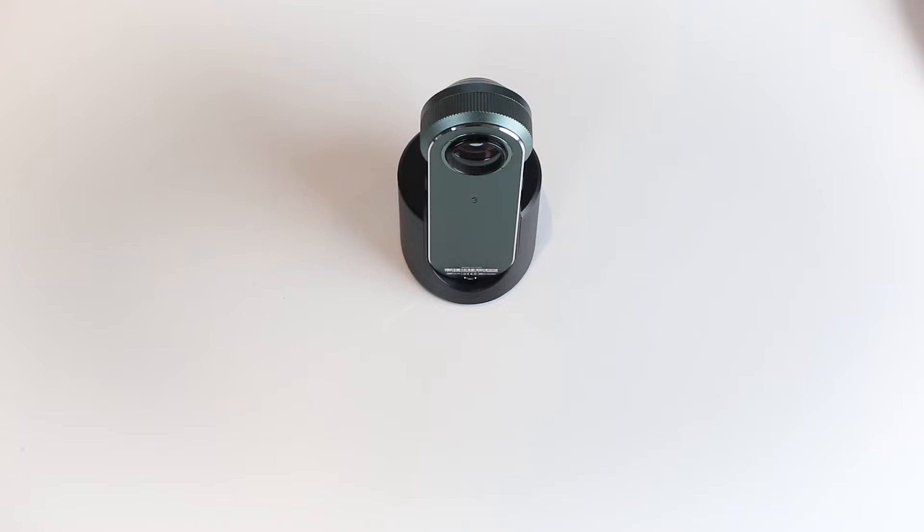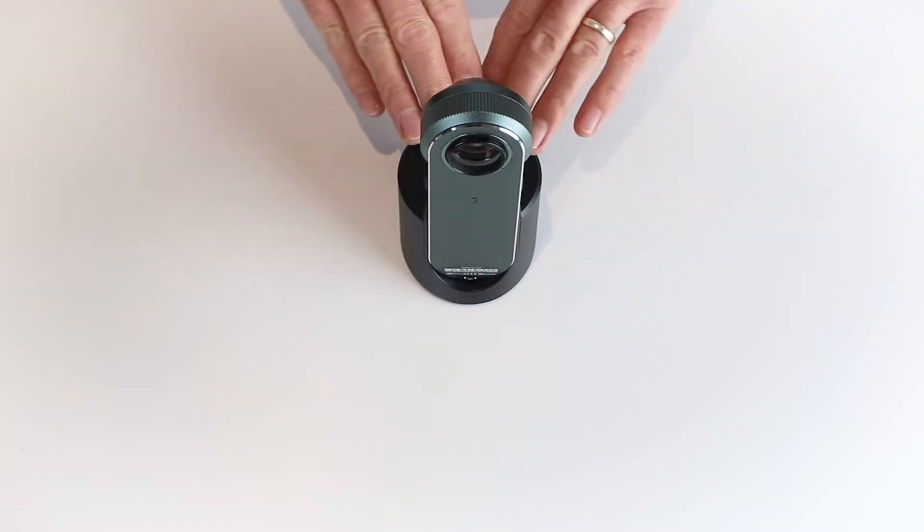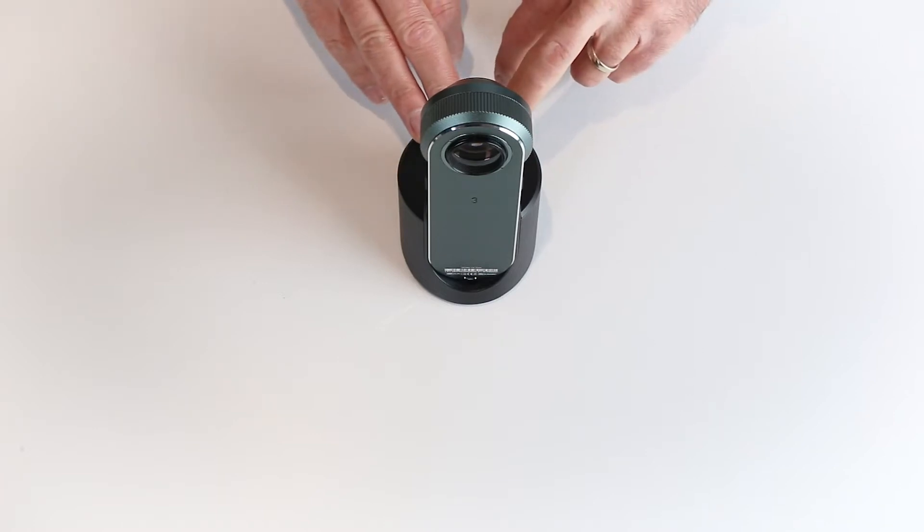Dermlite DL3N. The DL3N comes standard with a desk charger. The only method of charging with this unit is the desk charger, so it needs to be returned to the desk charger for charging.